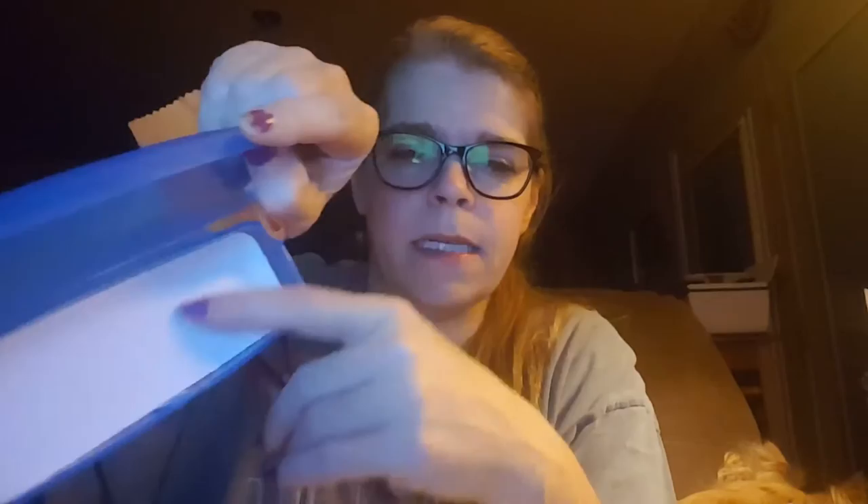I don't really see this case lasting — even where it opens up there's already a little crease here, and it looks like it may give pretty soon. It does close and clasp, but I don't see it lasting all that long. It does come with a cloth that says eyewearinsight.com on it, and the inside has a foam padding so it'll protect the glasses if you put them face down.